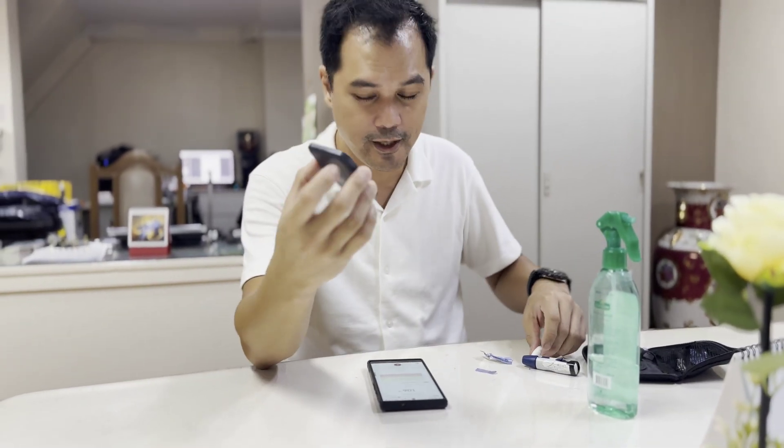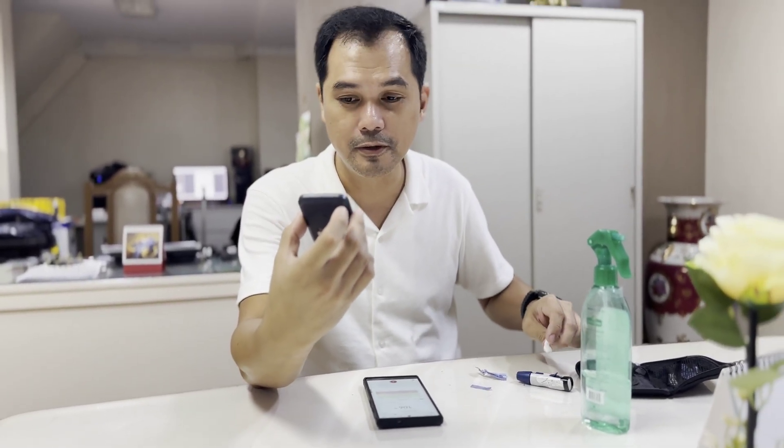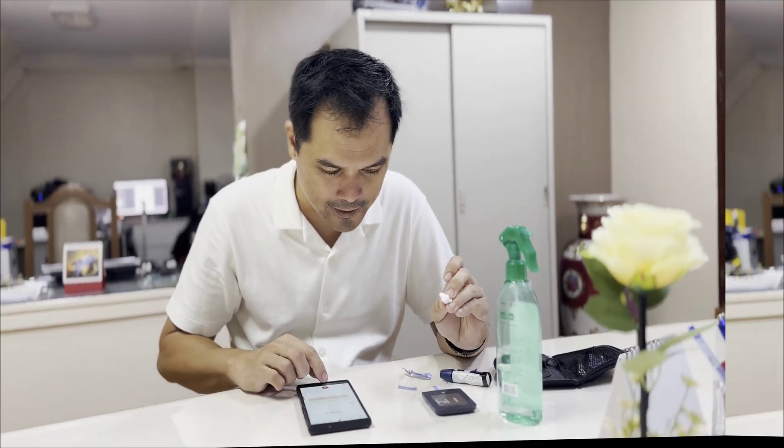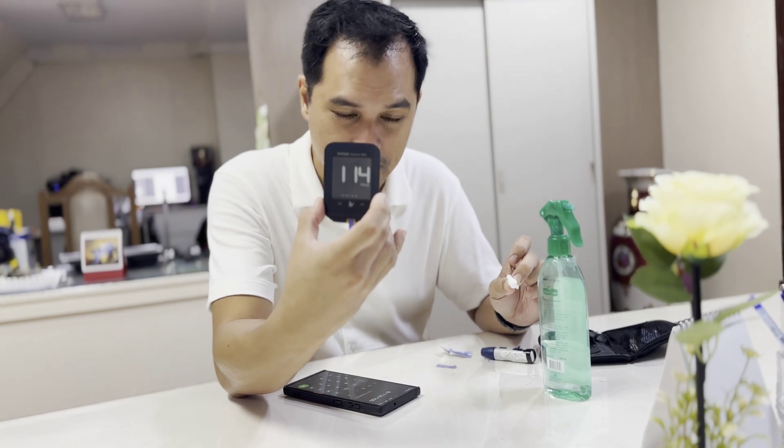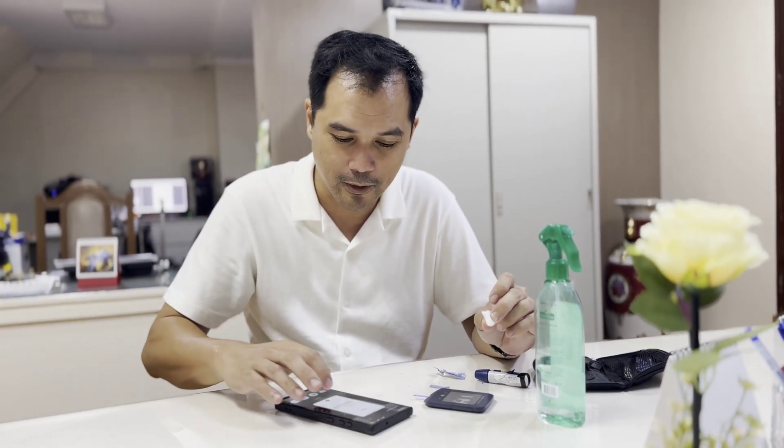114. So it's 106 from the CGM versus 114 from the traditional meter. Let's compute the percentage difference — the difference is around 7%, using 114 as the basis. So it's pretty close. A 7% difference is acceptable, and you can make estimated adjustments using the SinoCare app.